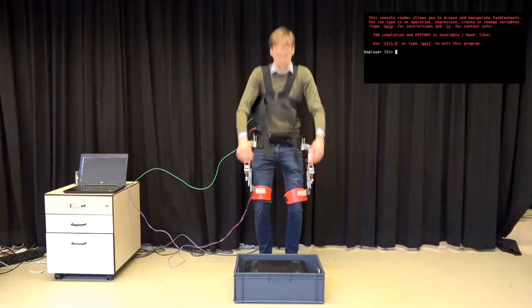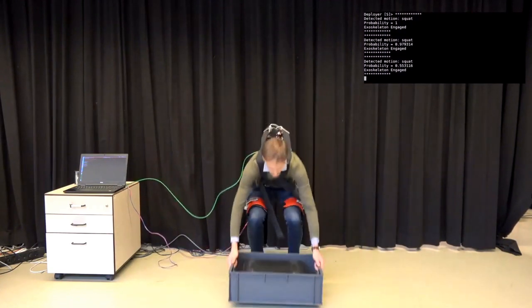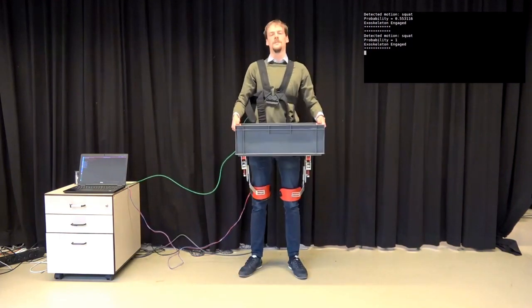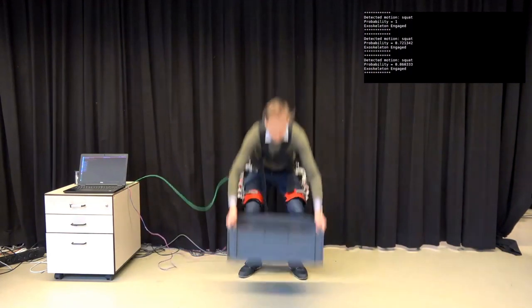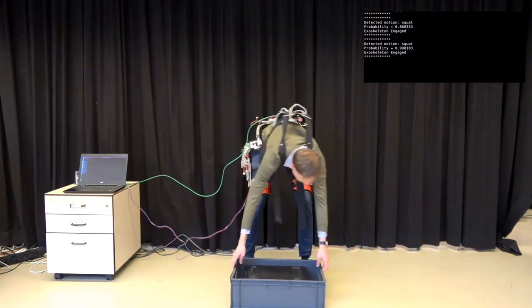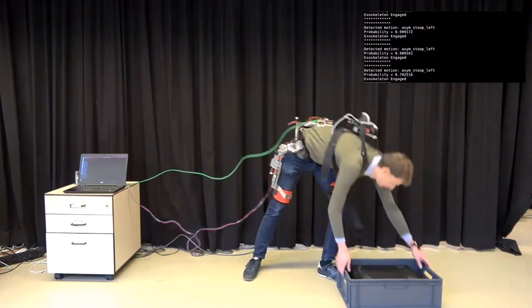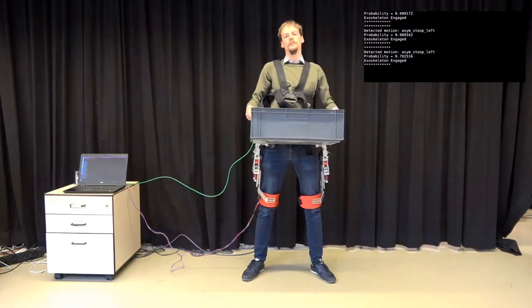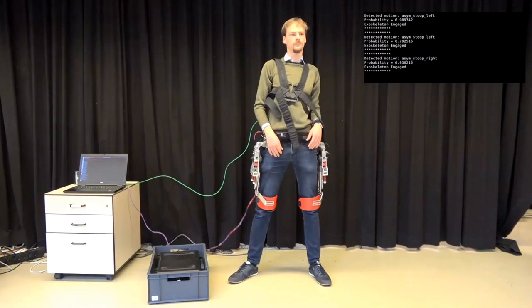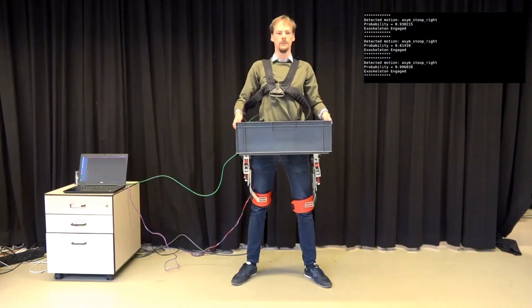The resulting behavior is shown in this video. In the top right corner, you can see the output of the exoskeleton. As you can see, the exoskeleton is able to recognize motions as well as provide an estimate of the probability. Apart from the probability and the detected motion, the exoskeleton is also able to provide an estimate of the progress of the motion as well as the expected utility score. However, these last two variables are not represented here to keep the video clear.